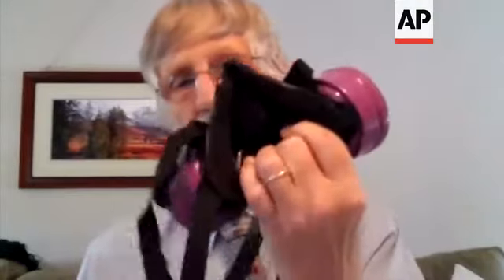This disposable respirator might filter out 95% of the particles. This respirator will filter out 100% of the particles. Researchers have studied how well surgical masks work breathing in, and they might filter out only 5% or 10% of the particles. A homemade mask — which is great that people are making to try to protect others — made out of material like a single layer of woven fabric might collect only 1% or 2% of the viral particles.